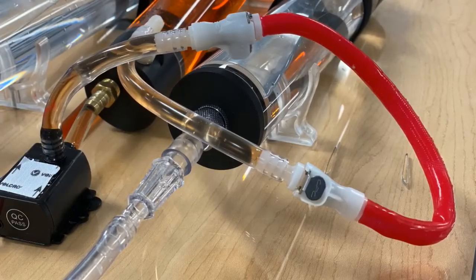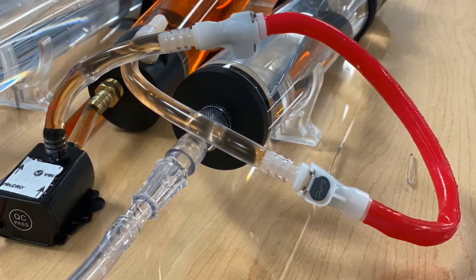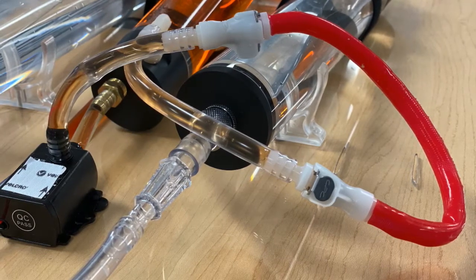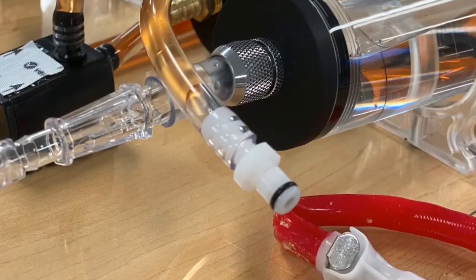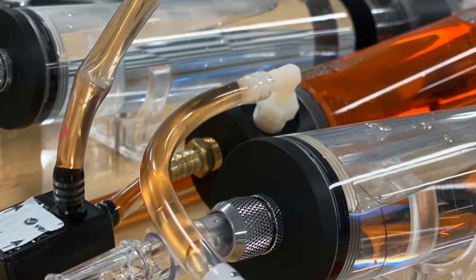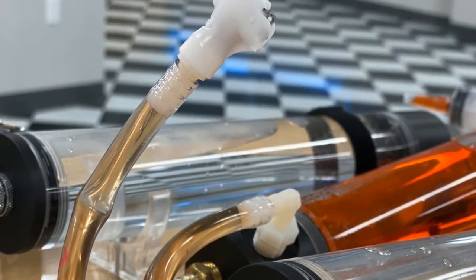This is a quick snapshot of the pumps circulating the fluids, yet still independent from one another while operating. All quick disconnects are not created equal — these are the ones that only flow when connected, thus giving the cannulation sites that true line replacement we were looking for.